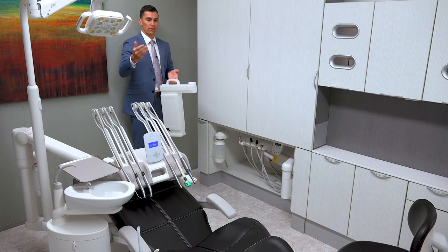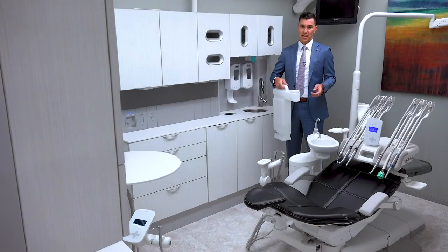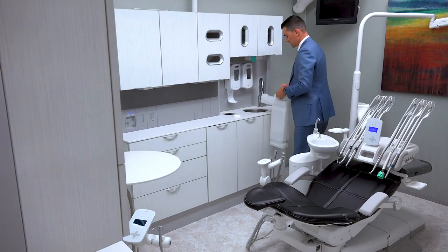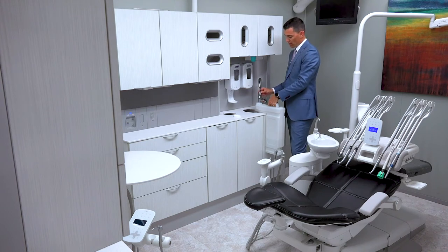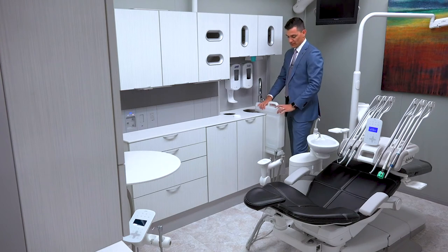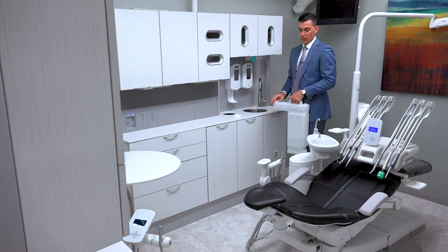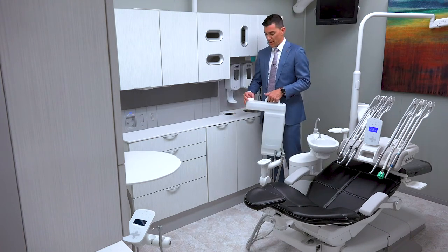We'll run the solution with our high volume and our saliva ejector. We've moved away from our central cabinet and brought our tank over to our sink. We're going to take the top off of the tank, set it on the lip of the cabinet, and easily fill the tank with our faucet without having to hold the full weight of two gallons. Once we fill it up, we're going to add the recommended vacuum line cleaner from the manufacturer of your vacuum, then put the cap back on.